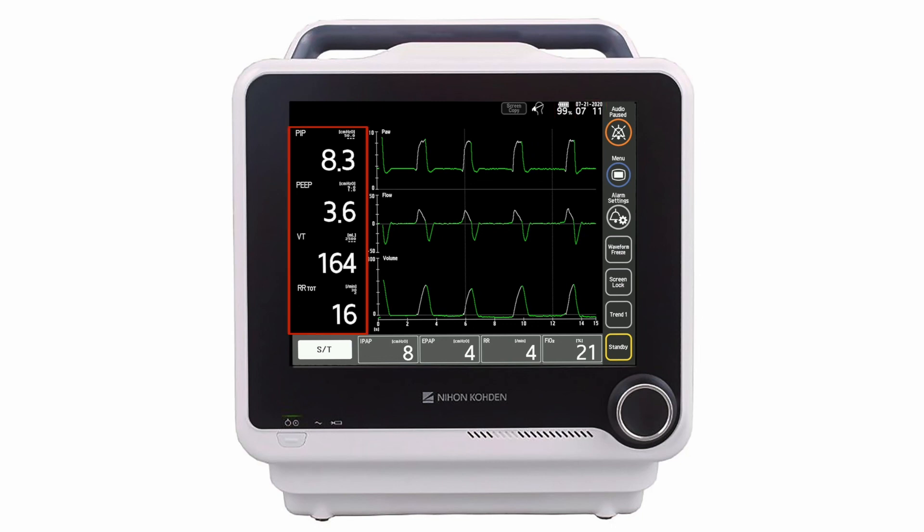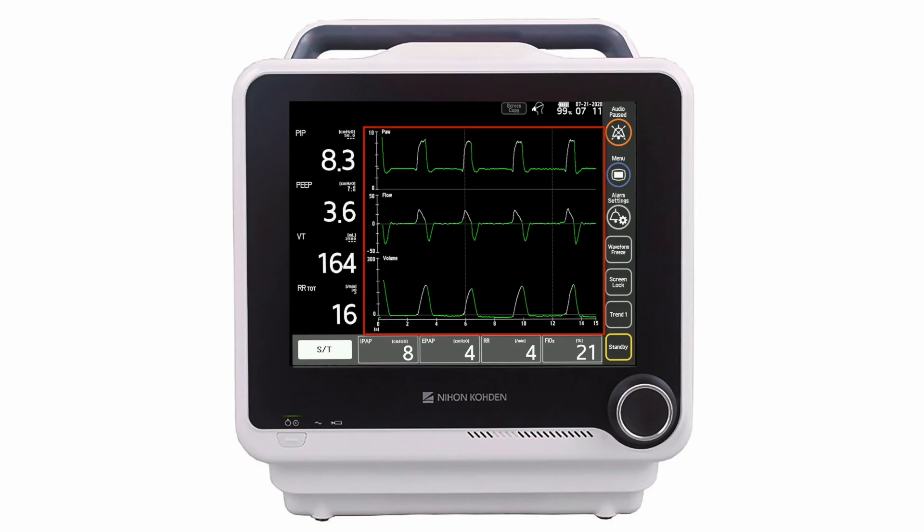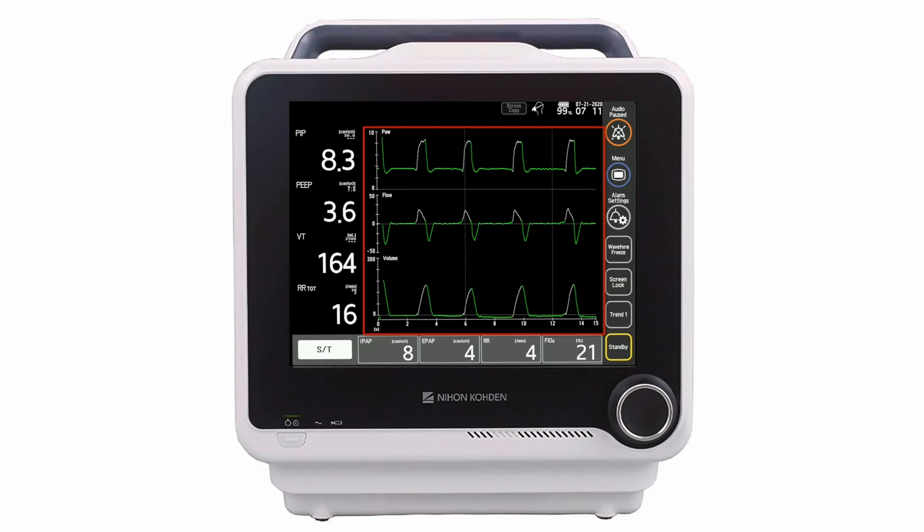The Numeric Monitor section displays the current value of the selected monitored parameters, which are configurable. The Waveform section displays waveforms and loops, and these are also configurable.